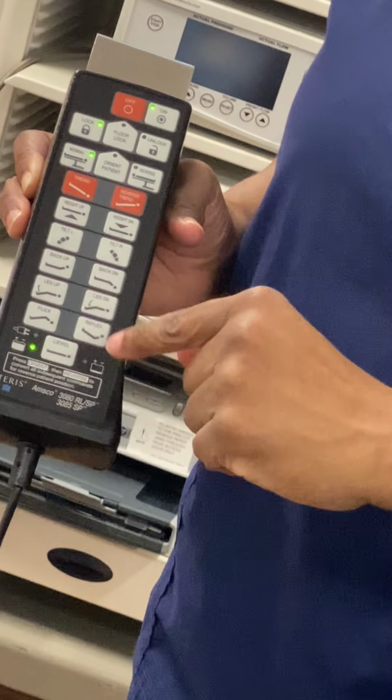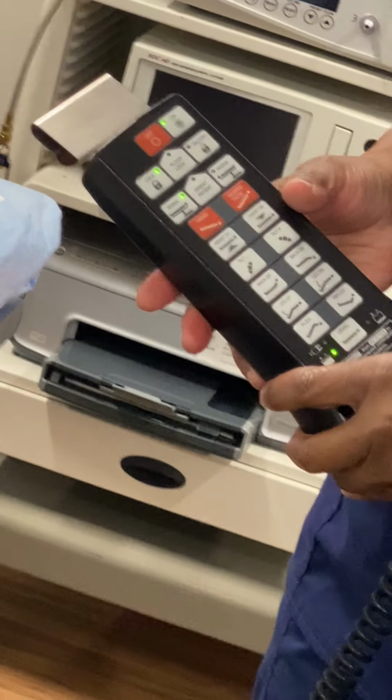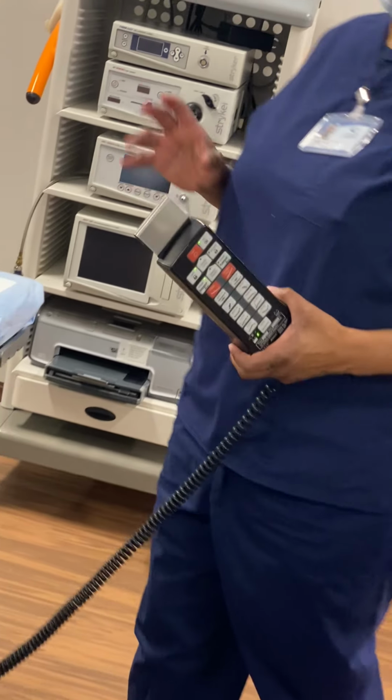I very seldom seen that. And level the bed means it's level, right? We gotta intubate first, okay? So once he intubates, then the anesthesiologist will be the one that turns the bed.